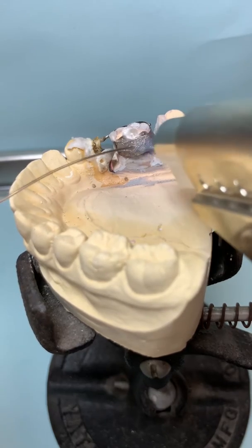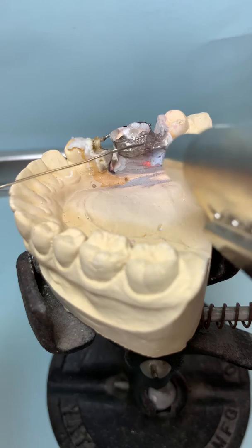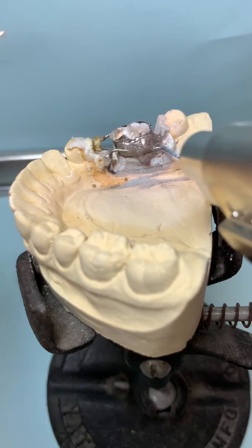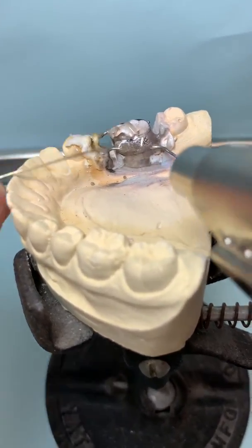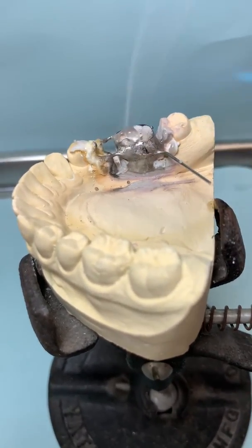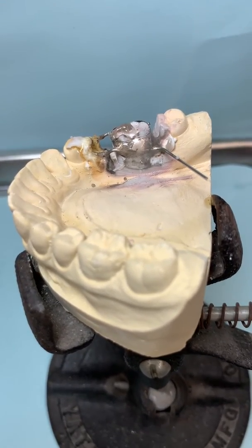Make sure we cover the band and we cover the wire. We keep adding and taking away as we go — taking away too much will weaken the solder joint. We're just adding a little more so we have a nice flow of solder. It's silver solder, so it's going to be very shiny.